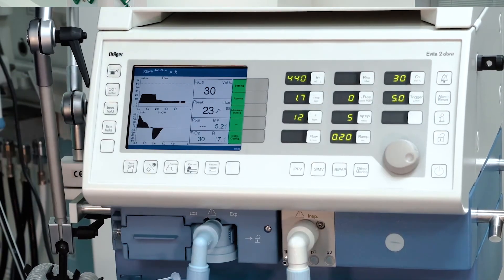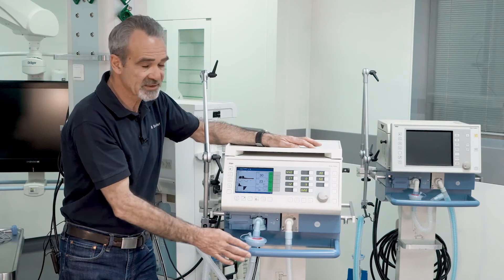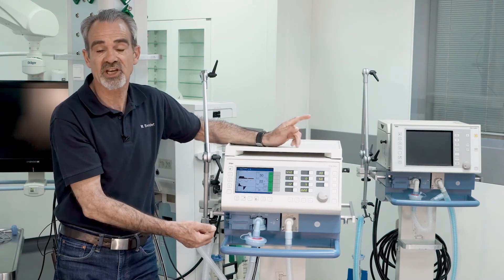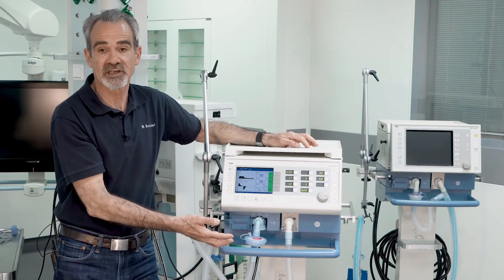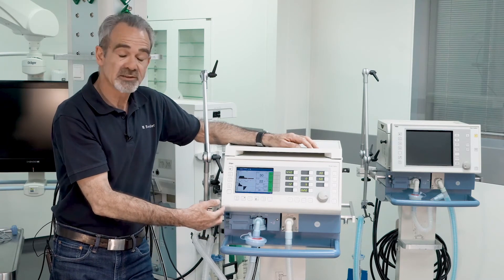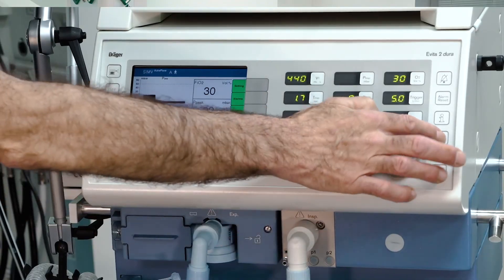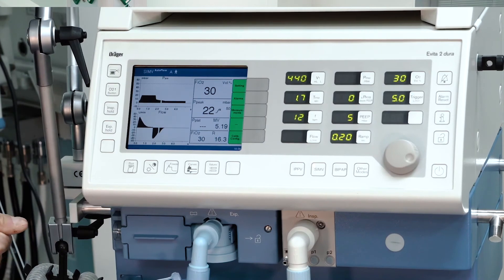The key lock protects the adjustment keys against unintentional changes, for instance during disinfection and cleaning. To unlock again, push the button once more.